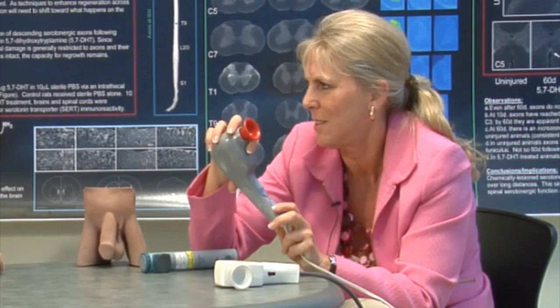If you are prone to dysreflexia, you can imagine that putting one of these on is going to shoot your blood pressure up. That's why it's better to test it on and off and see how you're doing in terms of symptoms — knowing that your symptoms don't correlate with your blood pressure. You could have no symptoms at all and still have high blood pressure, so be careful.